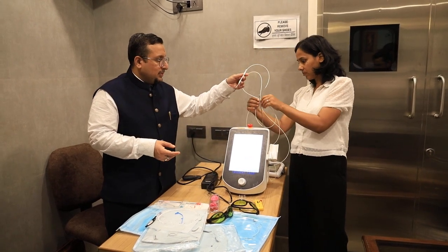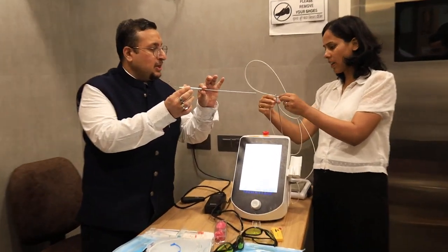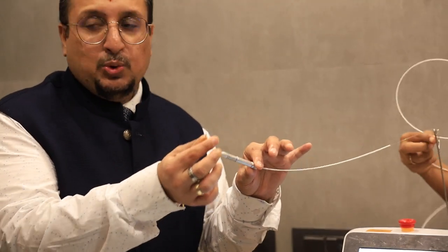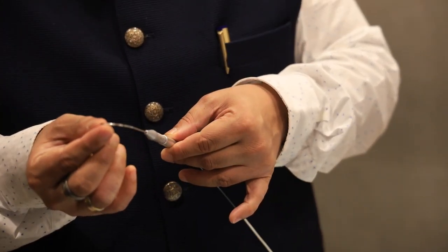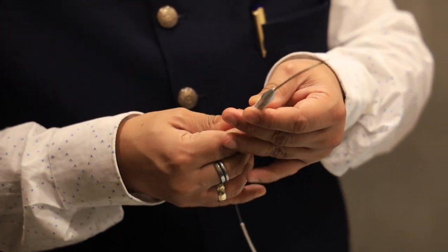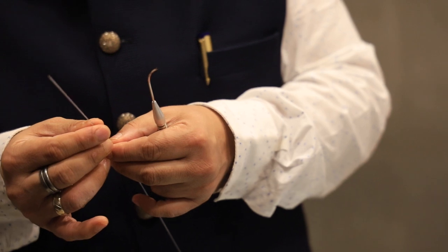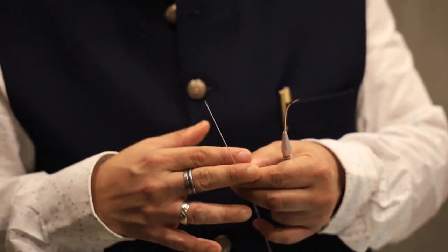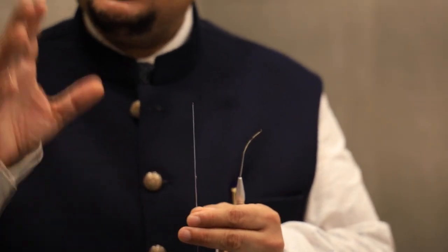This is the bare fiber. This is the handle and this is the hand piece. This hand piece goes inside the tissue with the fiber. The beauty of this bare fiber is you can cut it a number of times, so it can be used in 250 to 300 cases. My single bare fiber has been working for the last two years and has not been finished till now.